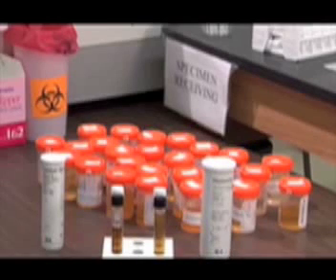In a hospital system, the urine samples will arrive at a receiving area, and information can be accessed via the LIS system. However, in this lab, recording of patient specimens must be done manually on a worksheet. In your lab preparation, you will prepare the worksheet, which has the following information: specimen number, color, turbidity, volume, and all of the chemistry results associated with each patient, which are obtained from the Urichem 1000.